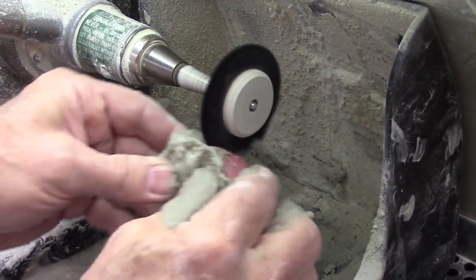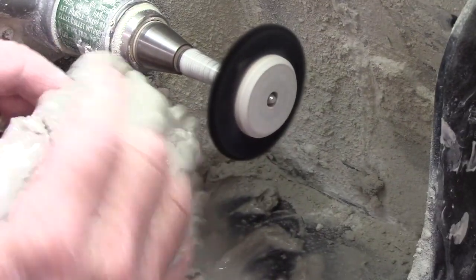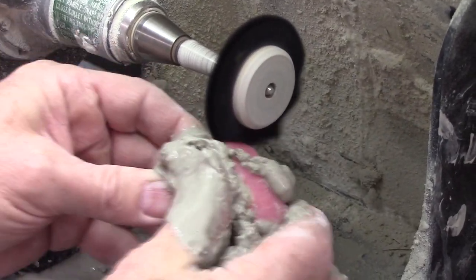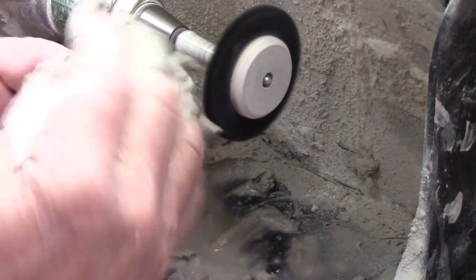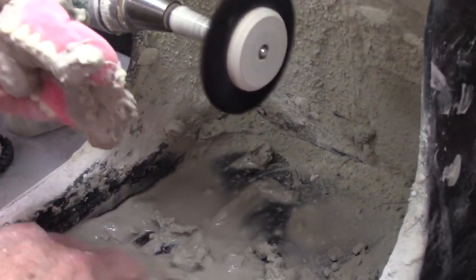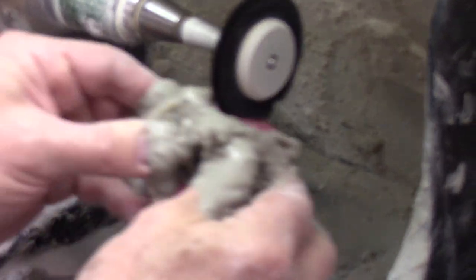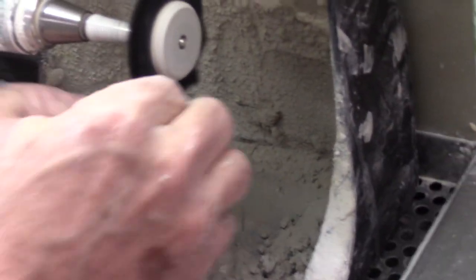You've got to keep it moving and press a little bit — it's just like using sandpaper. If you're barely rubbing the wood, the sandpaper is not going to do anything; you've got to press a little bit. You also have to keep it moving and keep applying pumice. As soon as it's cleared off, you have to put on some more. If you don't keep it moving, it's going to get hot and burn the acrylic in that spot.